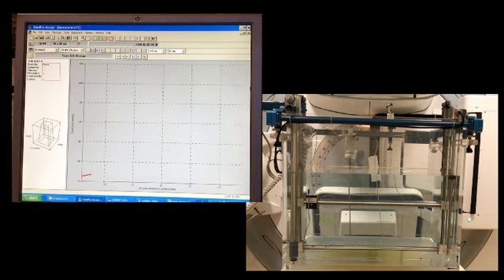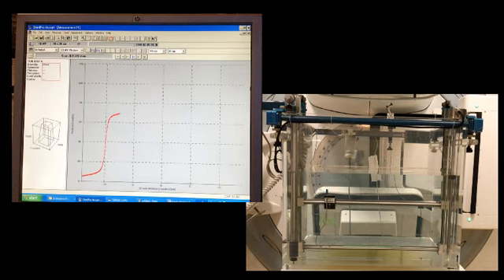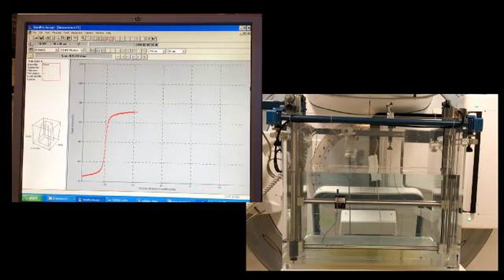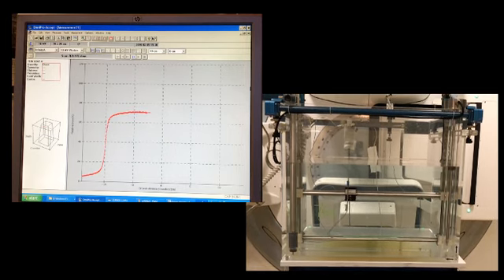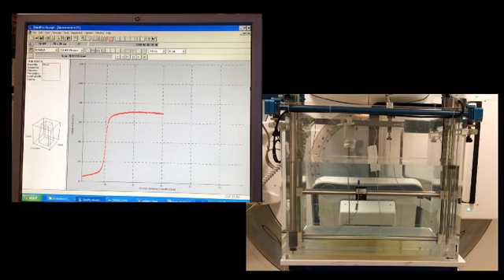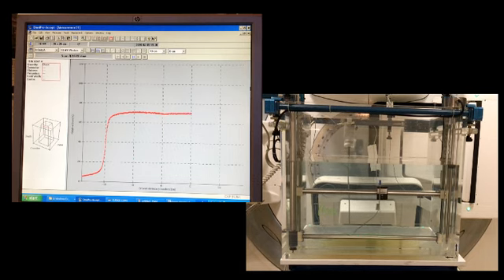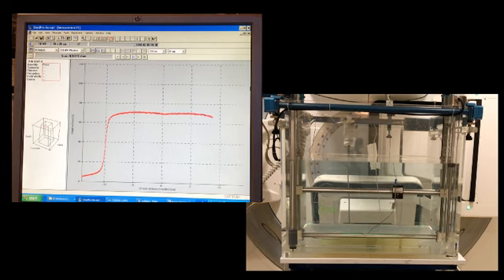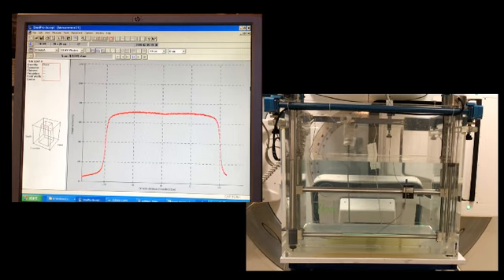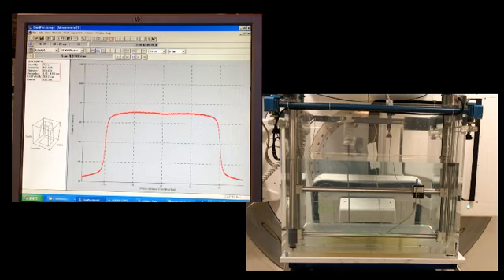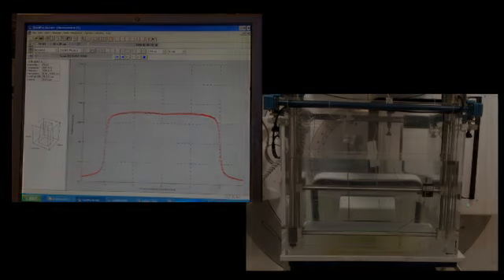Here's another example of scanning. If you look down on the right, the diode is scanning across the beam in this case. On the left you'll see the acquisition out in the control room. We're near the center of the beam, going across the center to the other side, scanning through the penumbra as it goes down. The diode, being smaller, gives you a nice reading of the penumbra.